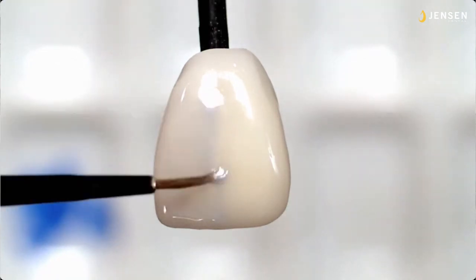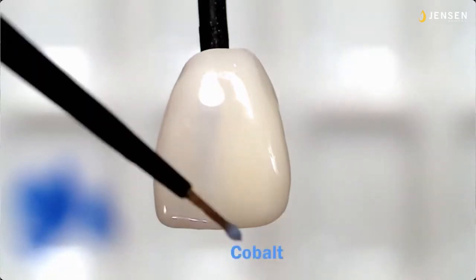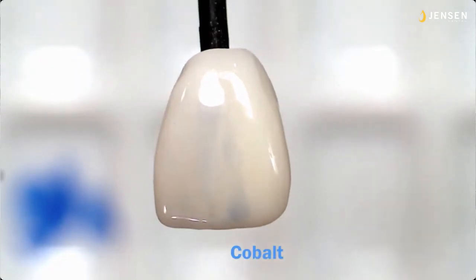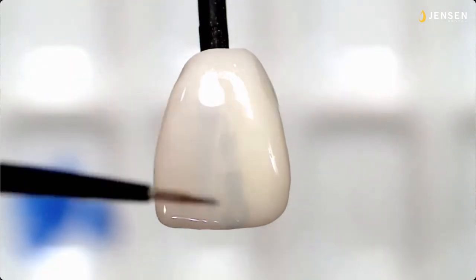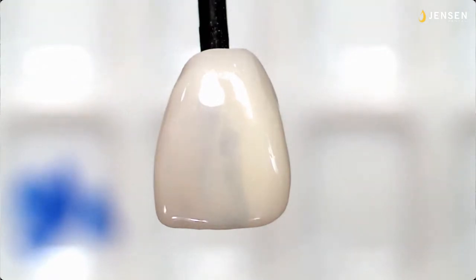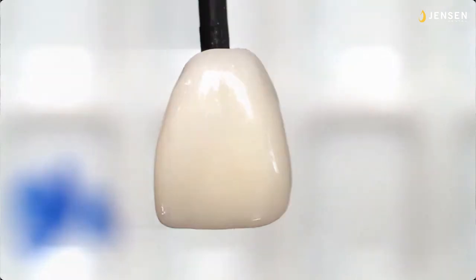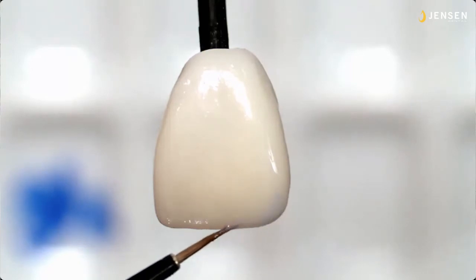So there, I'm carrying it up, and you can definitely see a difference between storm and smoke. And here's the cobalt. Now this is thinned down just as much, maybe even more, and look at the cobalt, look at the intensity. The cobalt is not very forgiving if you use it wrong. So I would suggest that before you use cobalt, maybe you get a restoration out, or you get your Vita shade guide or your Chromoscope shade guide, and you try it out and see how it works for you. So here I want to put a little storm down first. This is what I would do in real life.